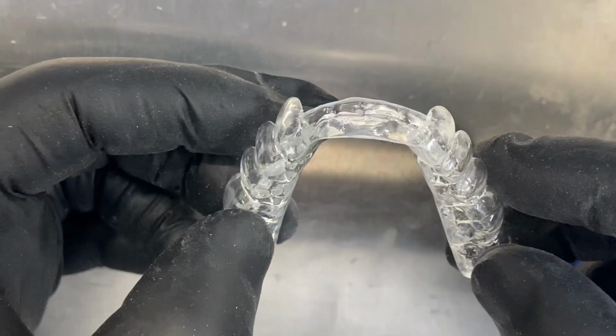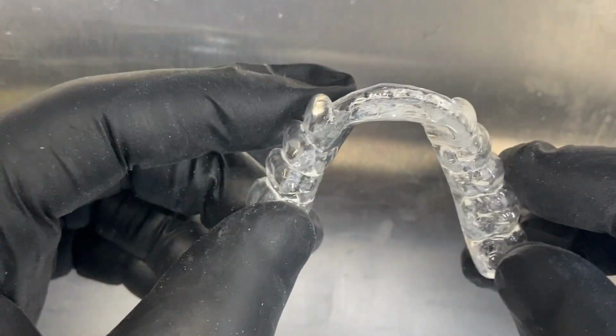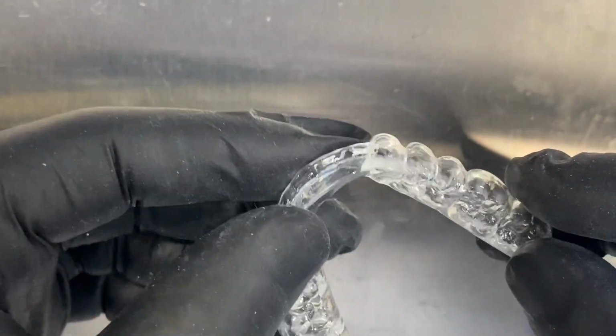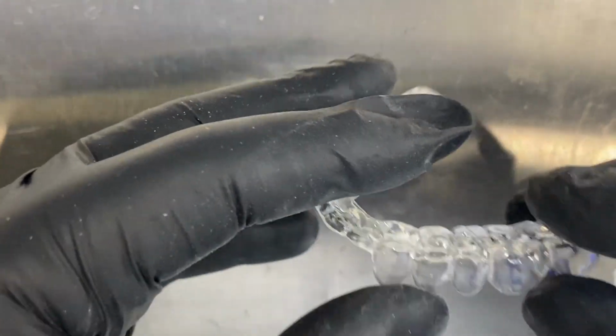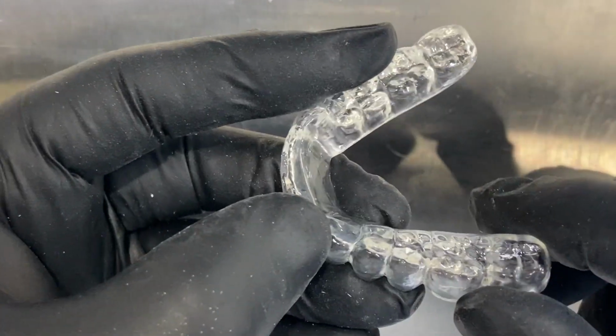So we're creating this video to provide some information about some technicalities of the orthotics. Today we have technology that allows us to use CAD-CAM technology in order to manufacture or design products or orthotics. The advantage of the utilization of CAD-CAM, first, is the density of the material.